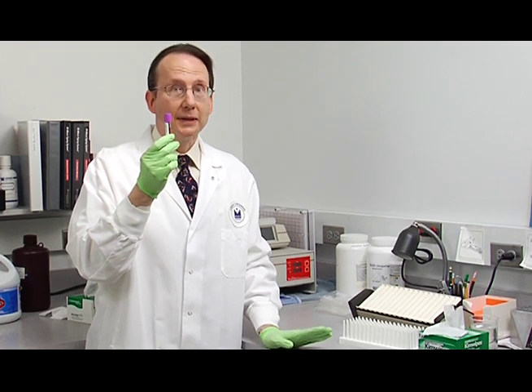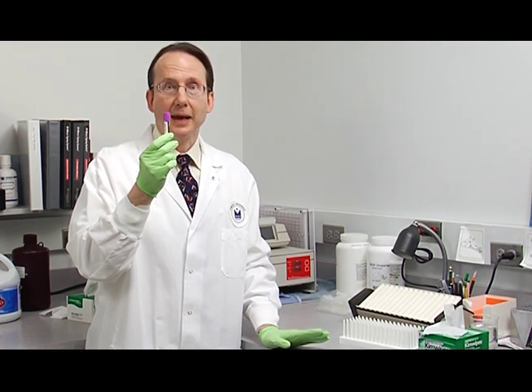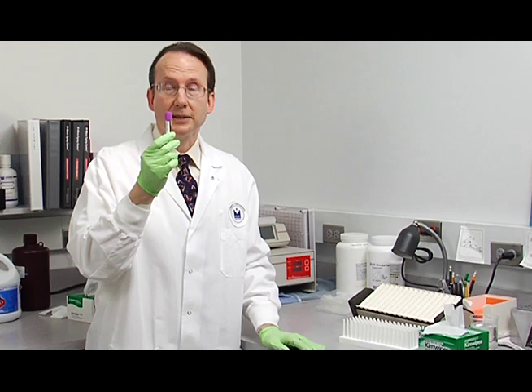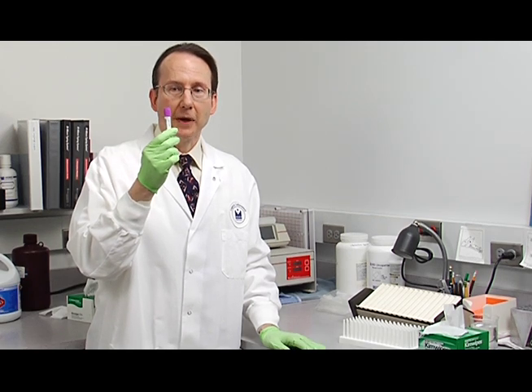You want to get a specimen that's no older than 12 hours from collection. Now, most laboratory procedures require it within 4 hours for testing, but for your practice, 12 hours will be fine.